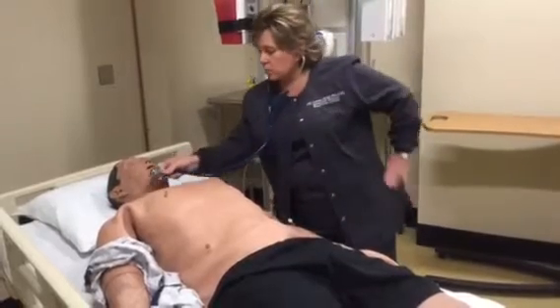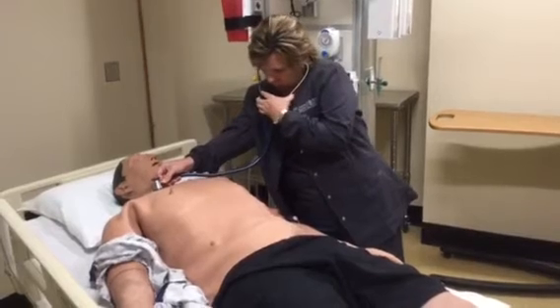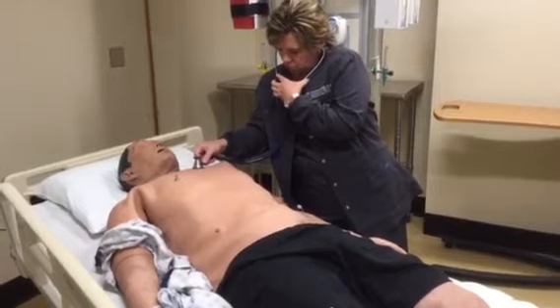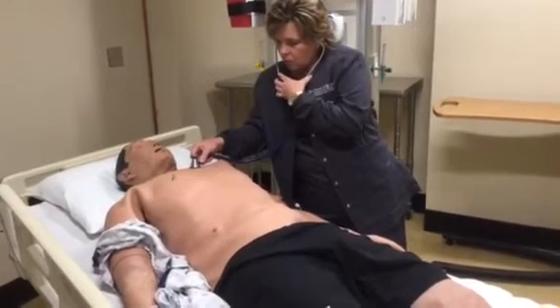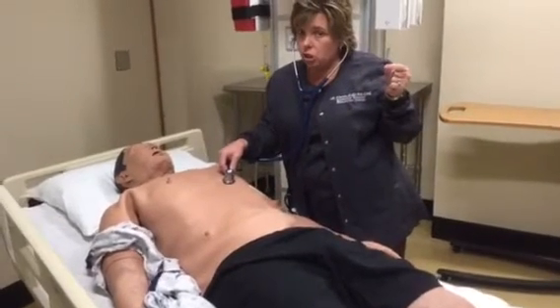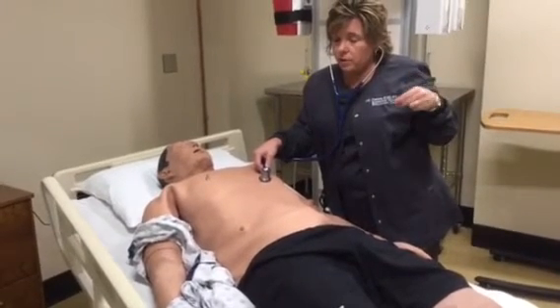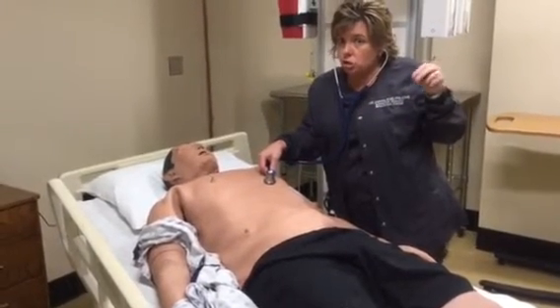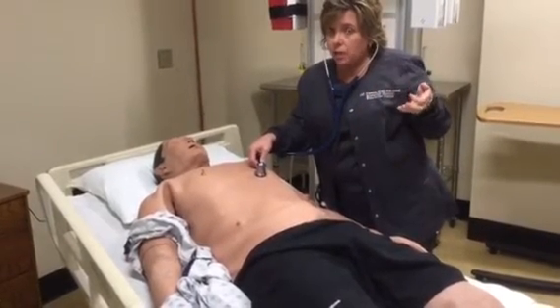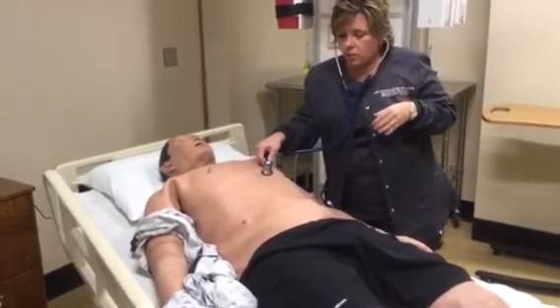The lung sounds will sound like you're hearing the breathing in and out. The heart sounds will sound more like a clicking, so it'll be a ch, ch, ch, ch. Or if it's a very quick rhythm, it may be a ch, ch, ch, ch. That's lub-dub, lub-dub. Or if you have, say, an S3, it would be a ch, ch, ch, ch, ch. So an extra heart sound that you would hear.